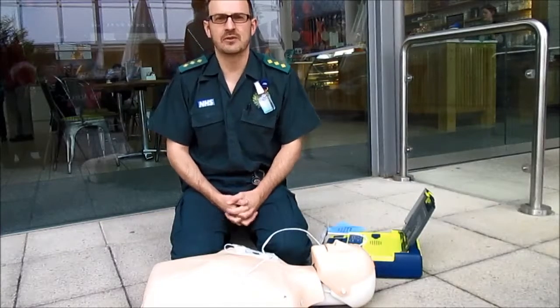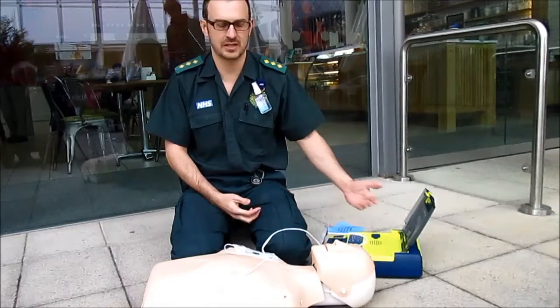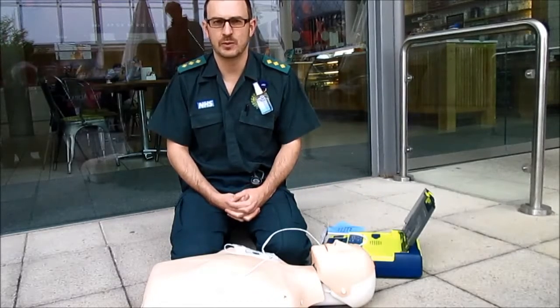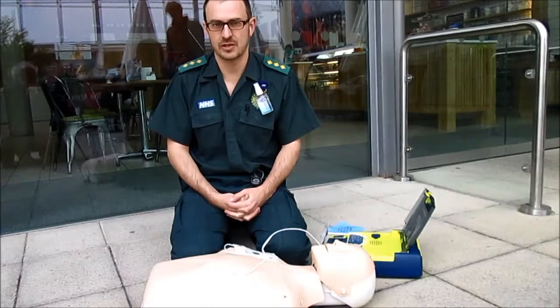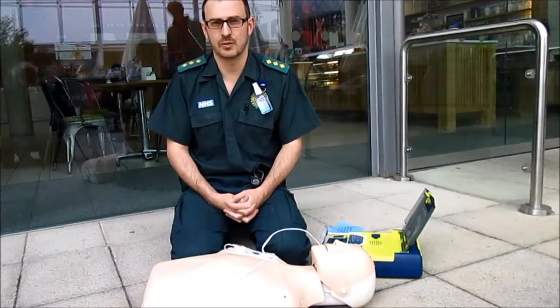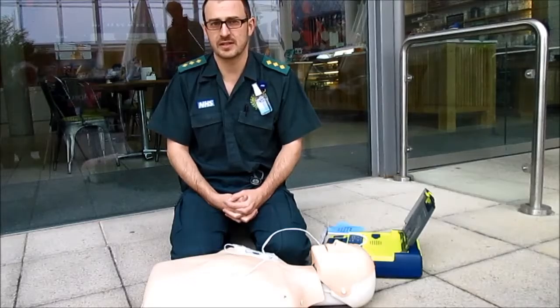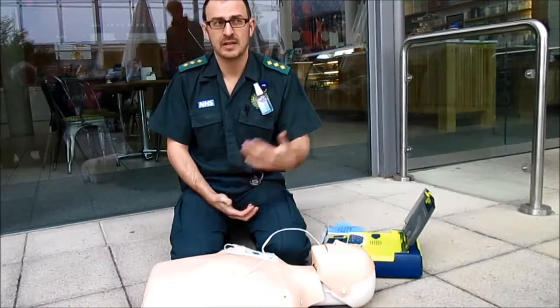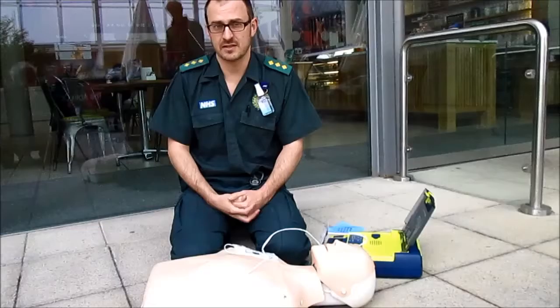We would carry on doing the CPR for two minutes until the machine told us to stand clear. It would then analyse again and most likely give another shock, after which we would carry on with the CPR. We carry on in this process until the patient started breathing normally again or the ambulance arrives and takes over.